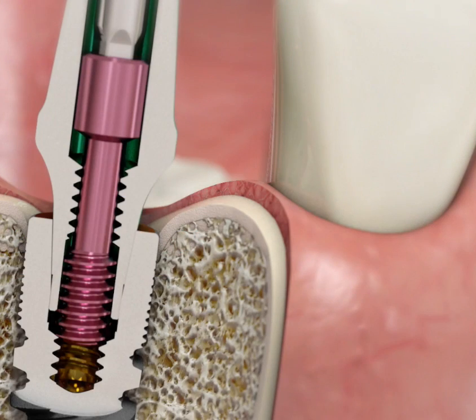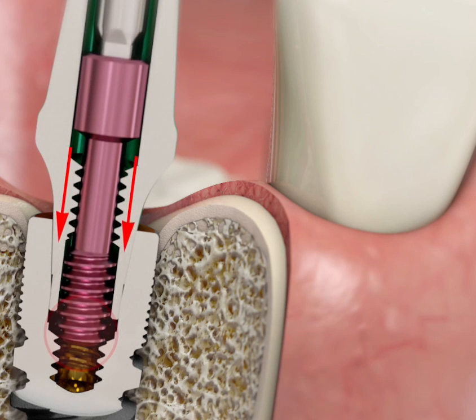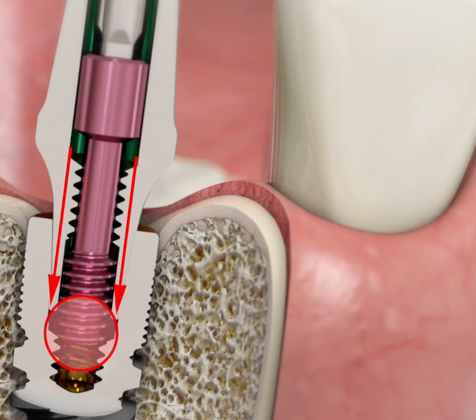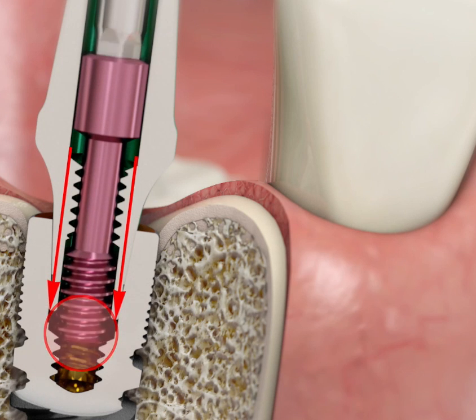Typical Mistakes. Do not push down on the screwdriver when unscrewing the fixing screw. Pushing down prevents removal of the fixing screw because it comes to rest between the threads.